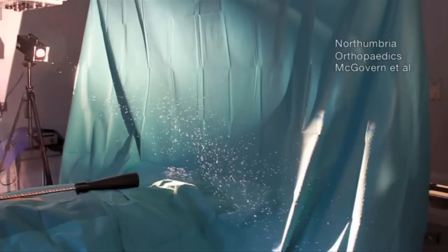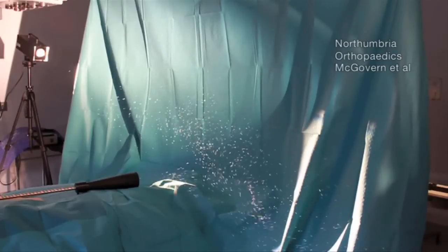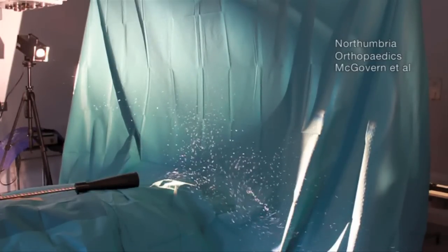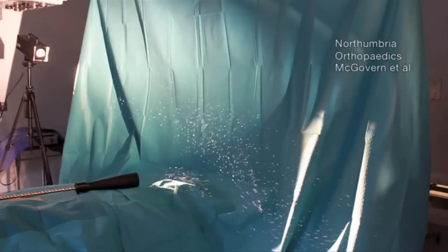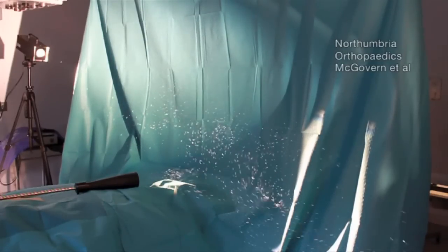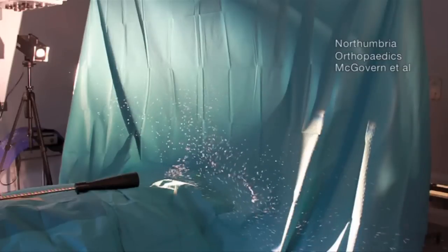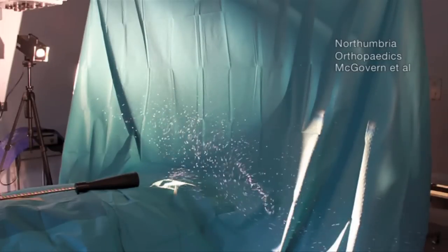With the heat turned off, no particles are detected on top of the table. The vacuum in the vortex formed by the radiated waste heat combined with the ether screen flow obstruction literally sucks contaminated particles off the floor and puts them into the sterile surgical field on top of the table.